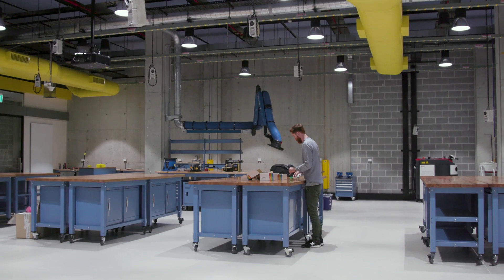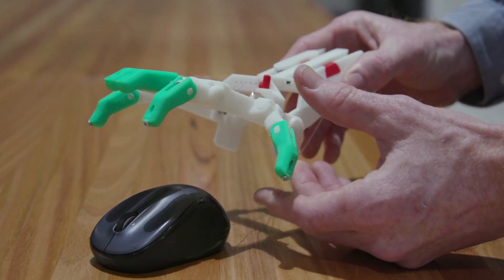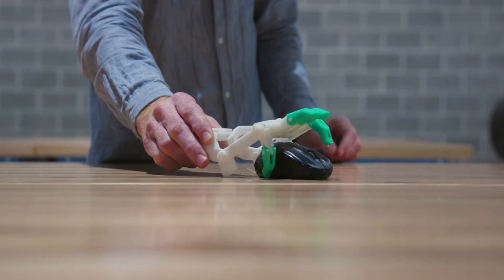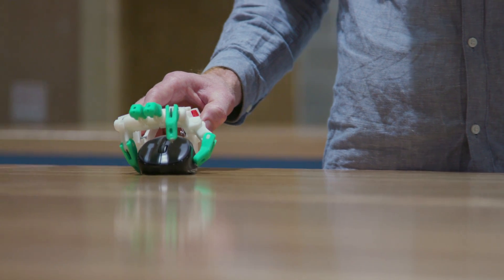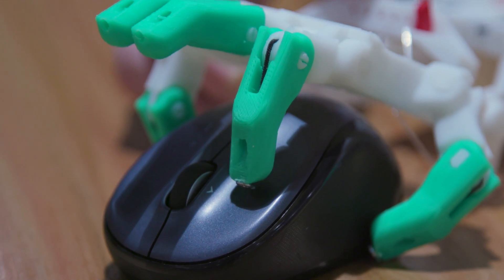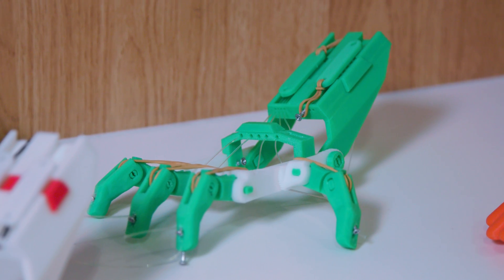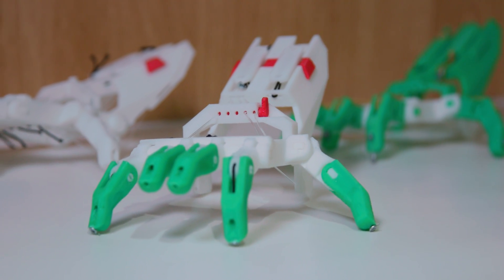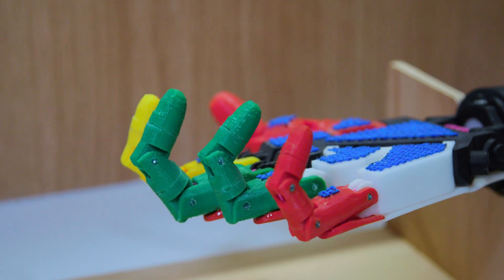There are quite a lot of organizations now who are taking 3D printers into developing countries because it's so cheap and affordable to use, and trying to help people who may be suffering from different health-related illnesses and diseases. Our vision for the future with these prosthetics is hopefully in developing countries there'll be these 3D printing hubs, maybe in a local community, and through using these prosthetics, hopefully they can improve on them themselves.